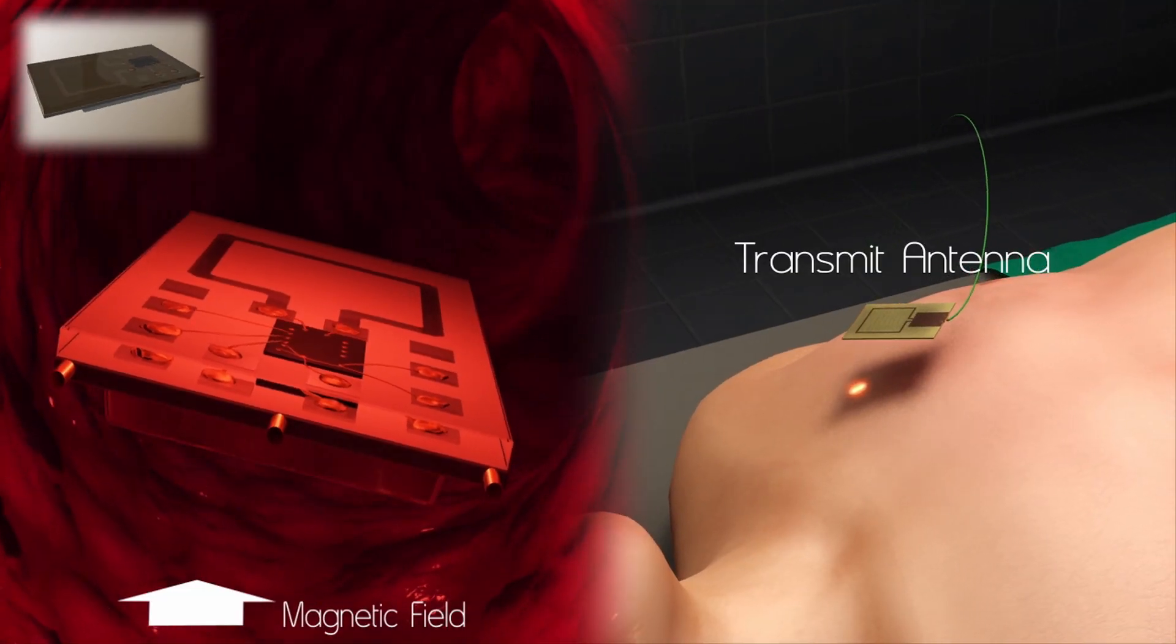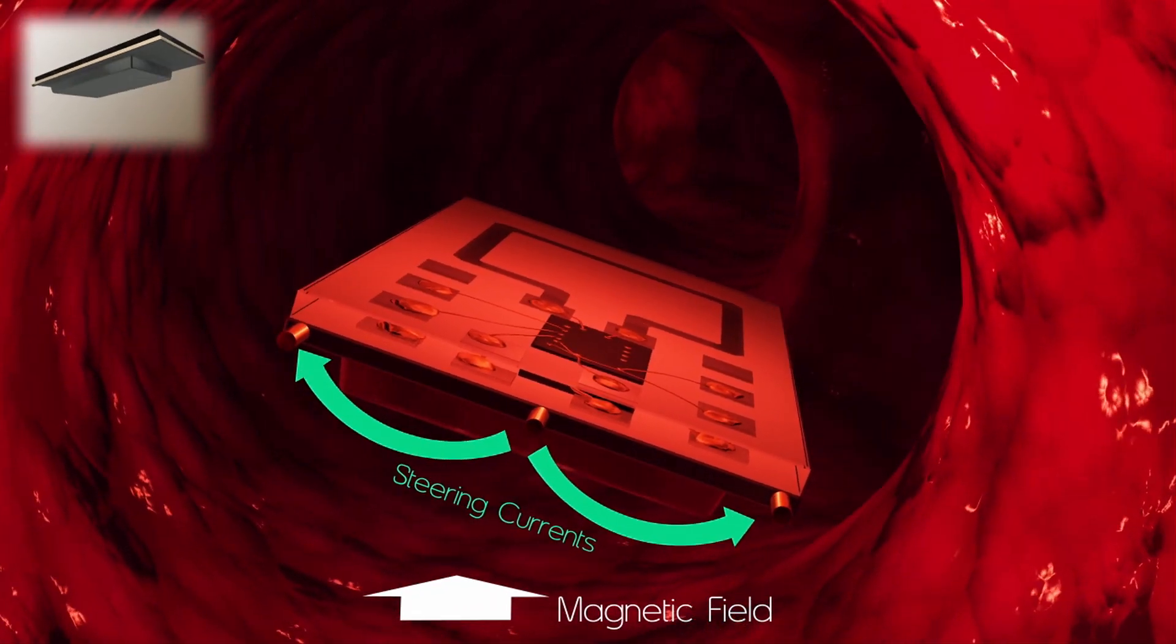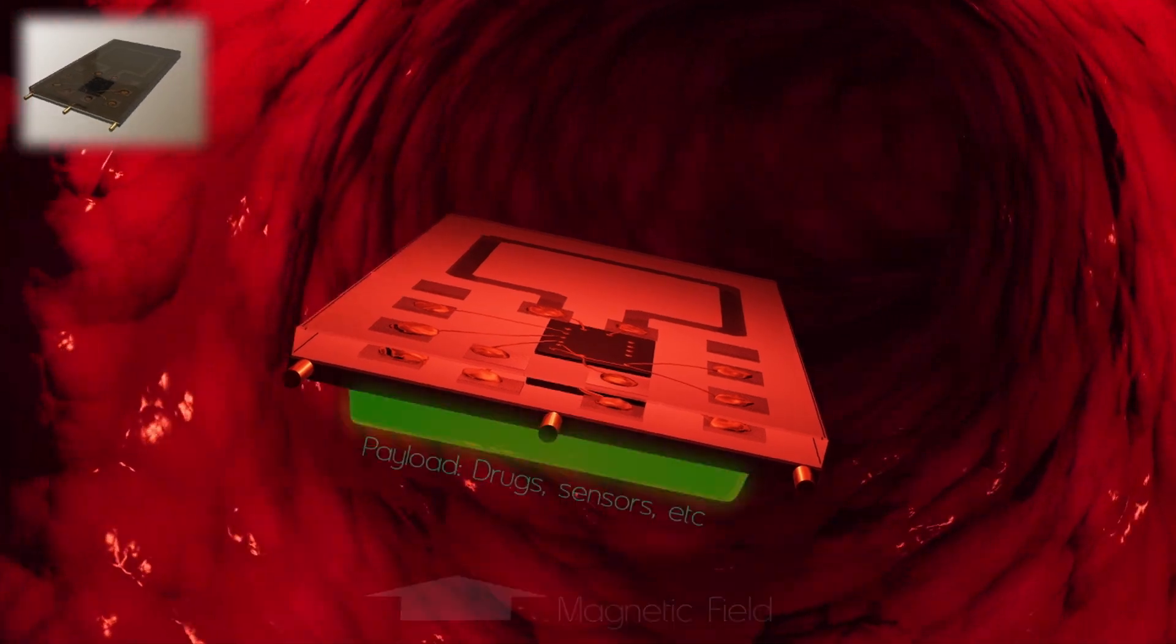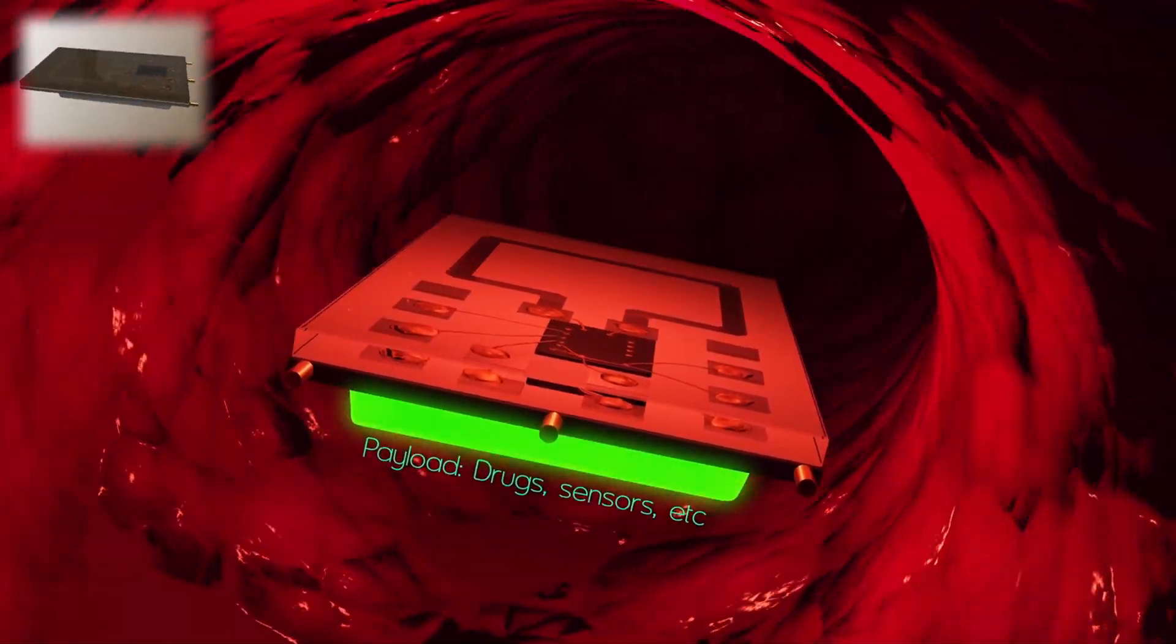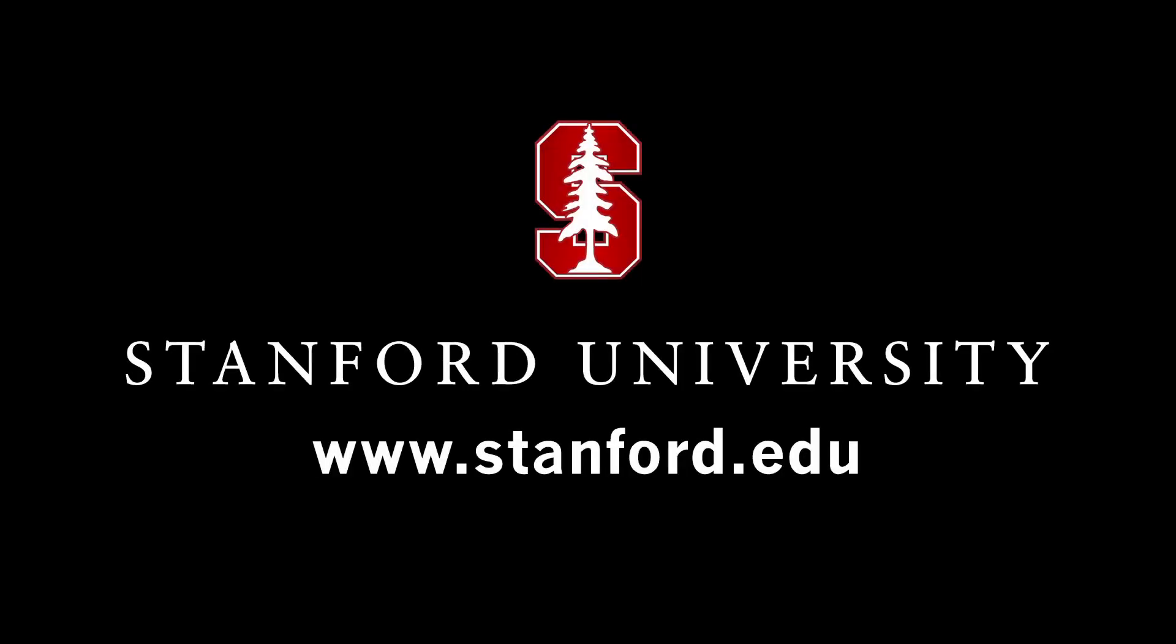These sort of technologies haven't even been possible before, and so the applications that it can serve really don't exist at this point. It sort of opens up a whole new realm of applications for medical technology. For more, please visit us at stanford.edu.